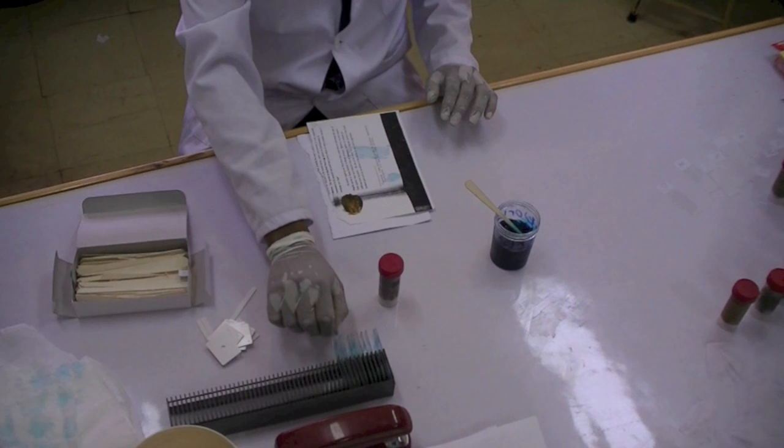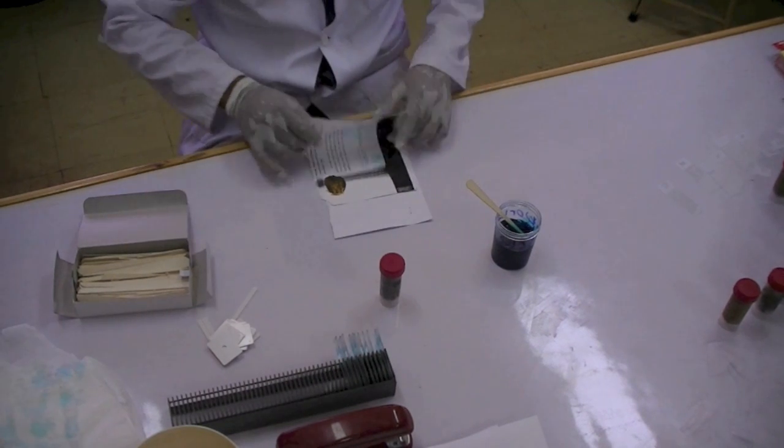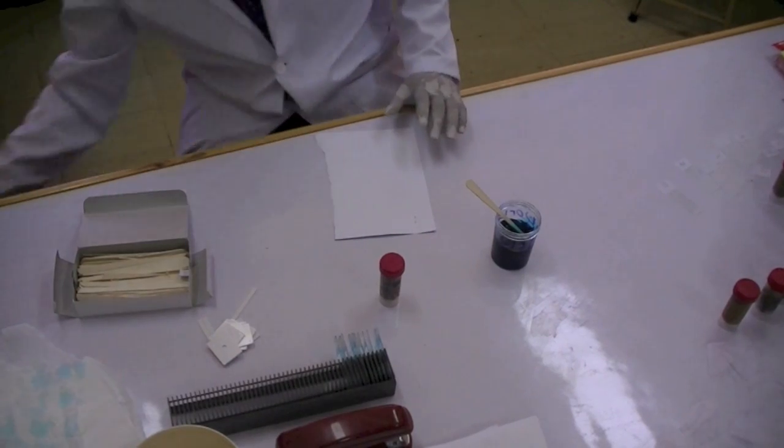Place the slide in the holder and remove the scrap paper with the stool sample so that you can continue with the next stool sample.